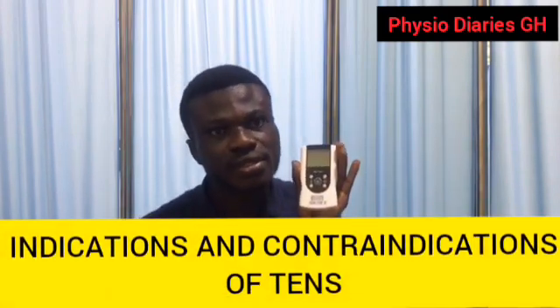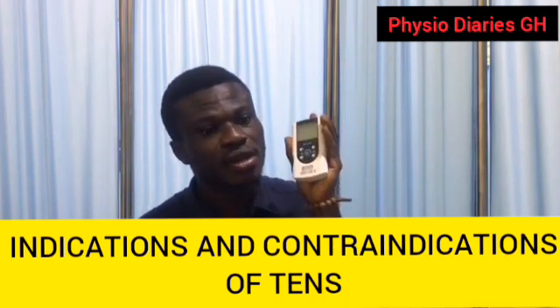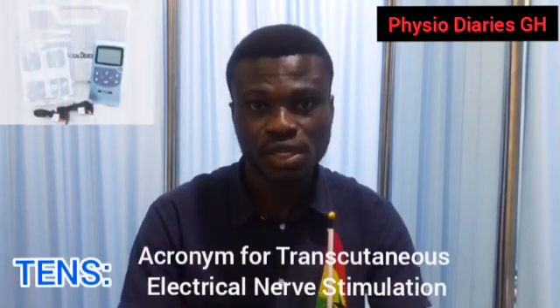This is another modality used in physiotherapy units for managing both chronic and acute pains. In this video, I'm going to talk about the indications for this particular device, and I'll also stress on contraindications, because that aspect of the application of the machine is very crucial for physiotherapists to know. We have to know the indication and contraindication when we are dealing with TENS. TENS is an acronym for Transcutaneous Electrical Nerve Stimulation.